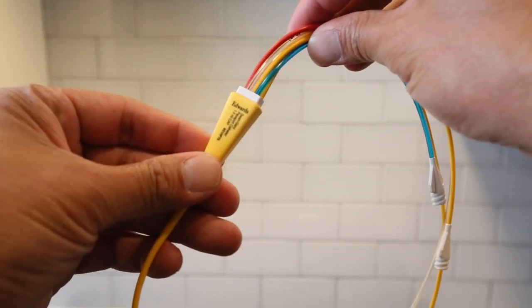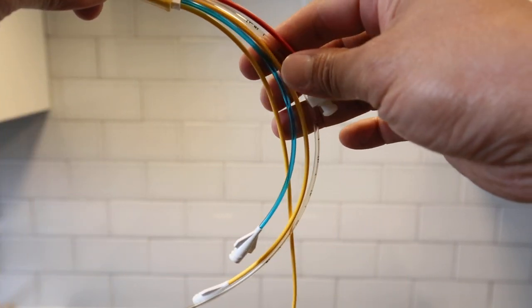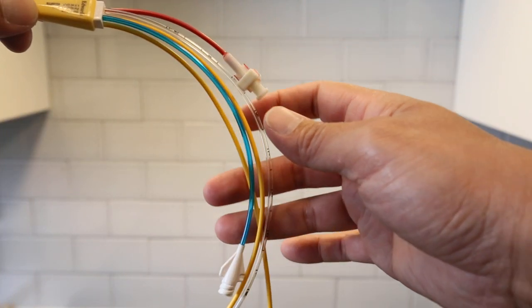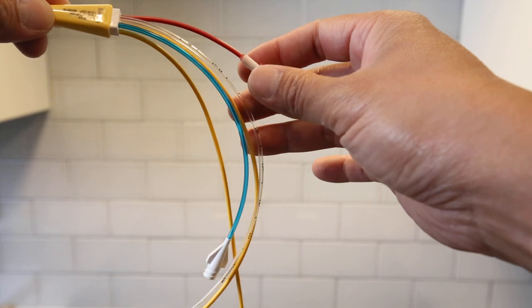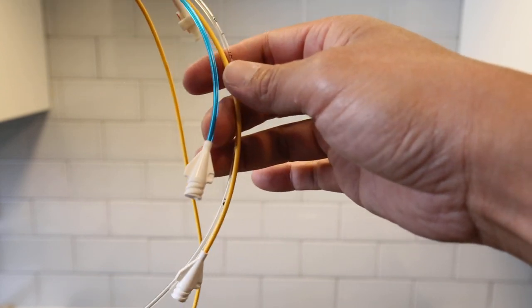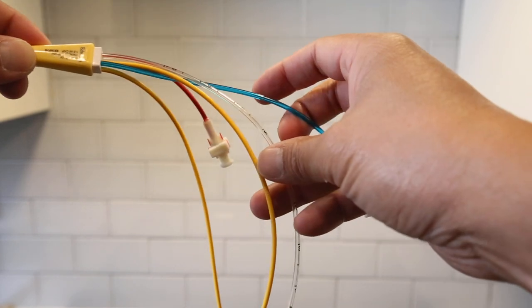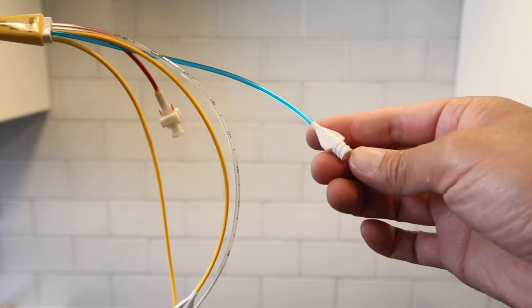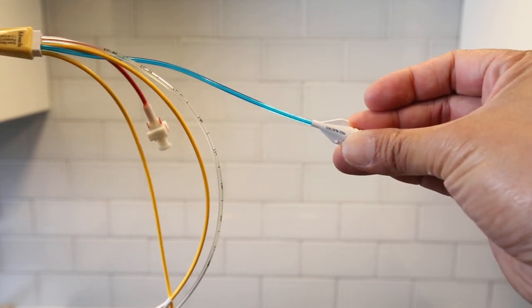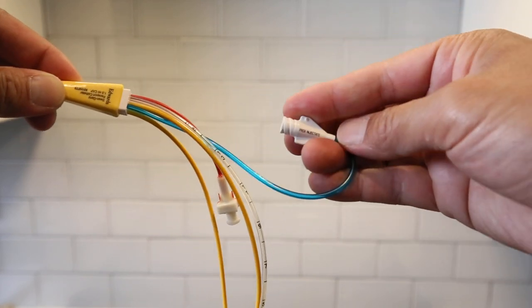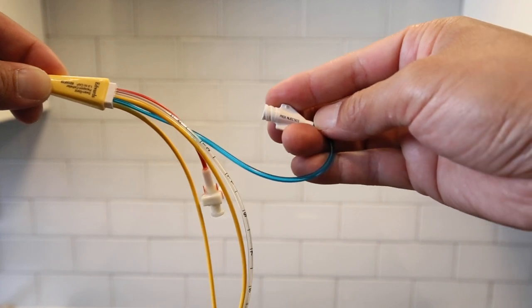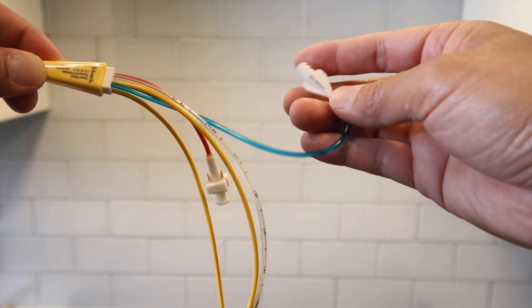The hub is right there near the shortest part, and the next one is the injectate.